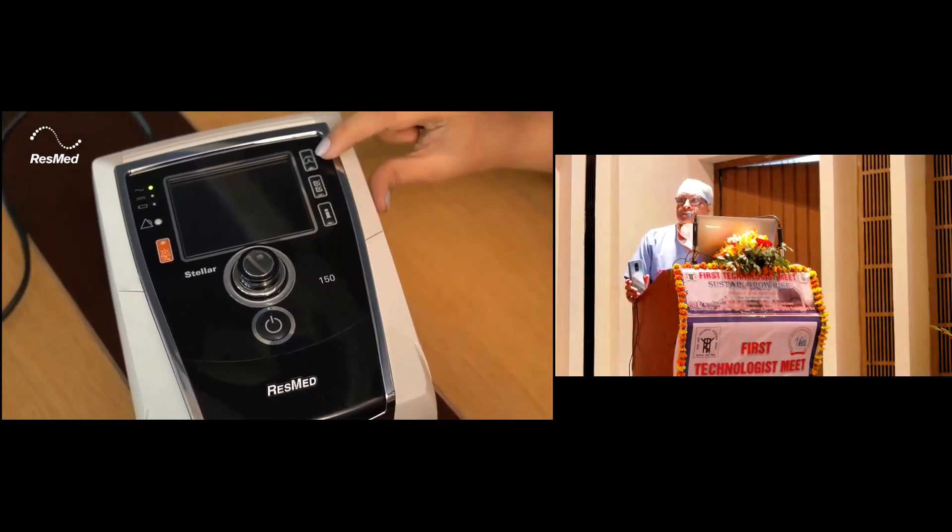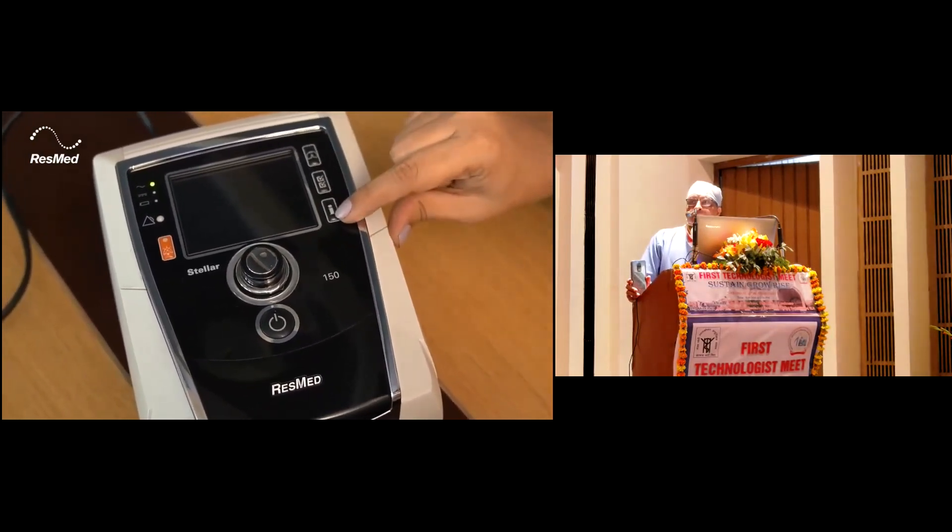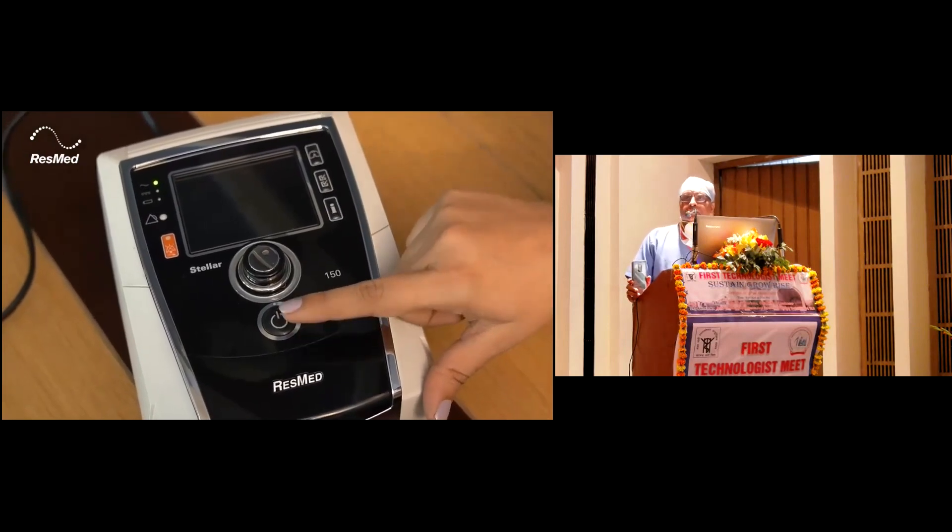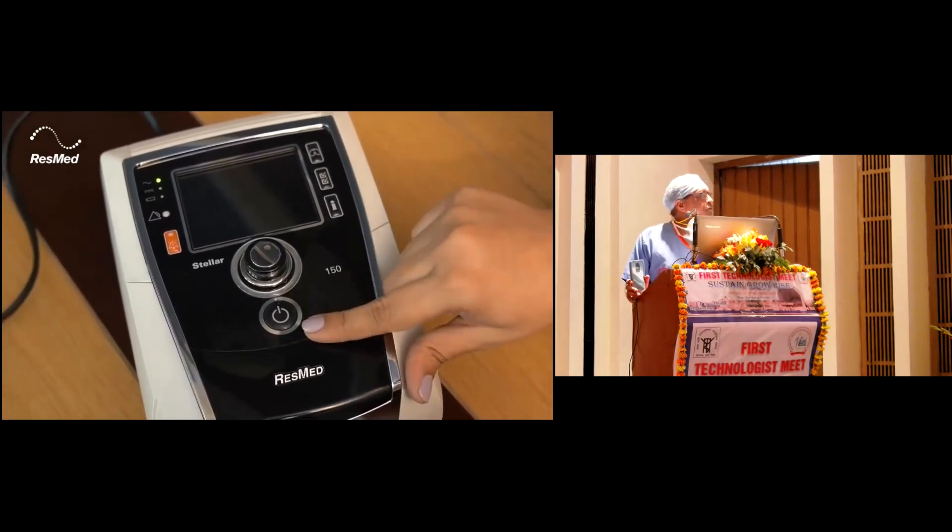Over here we have the main menus: the monitoring menu, the setting menu, and the information menu. Then we have the power on button over here to start ventilation or stop ventilation.